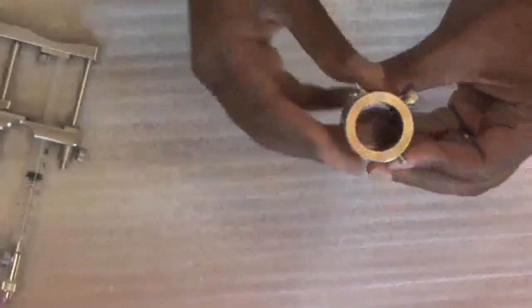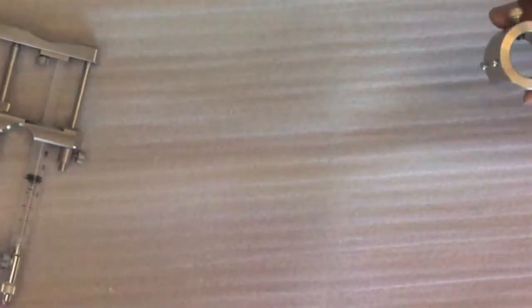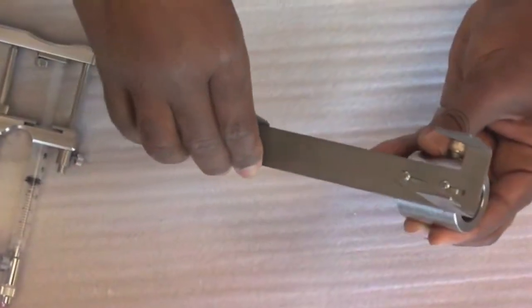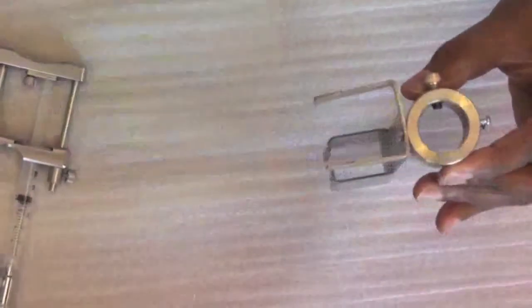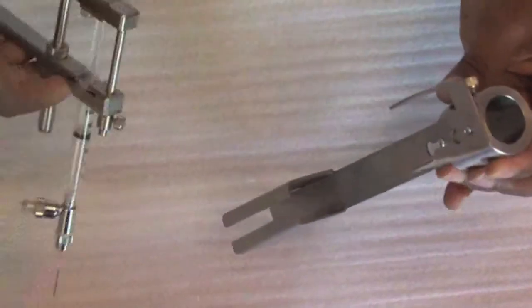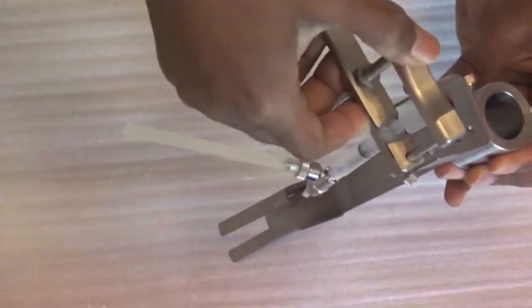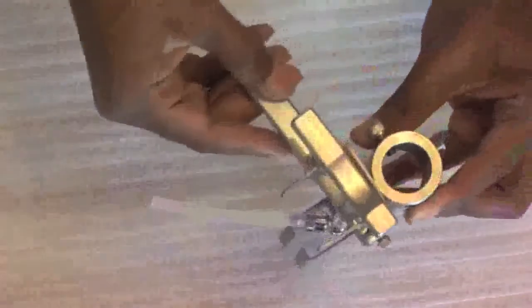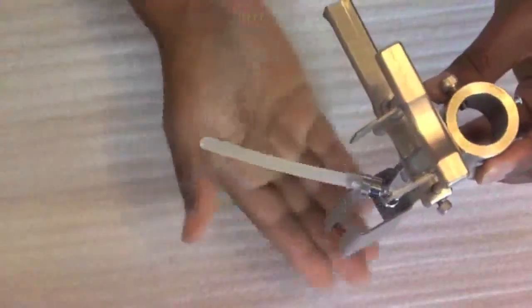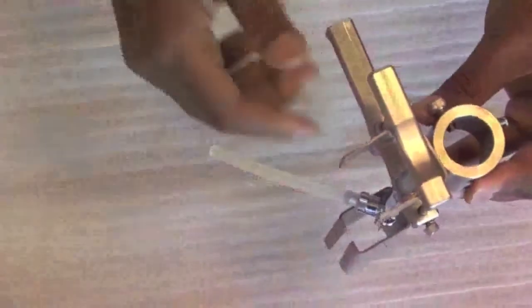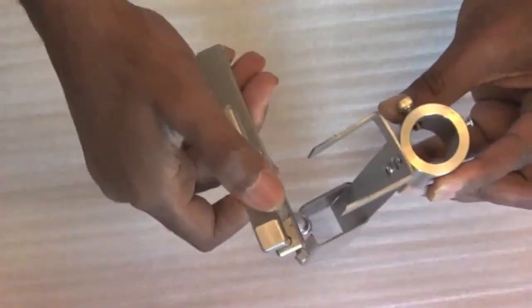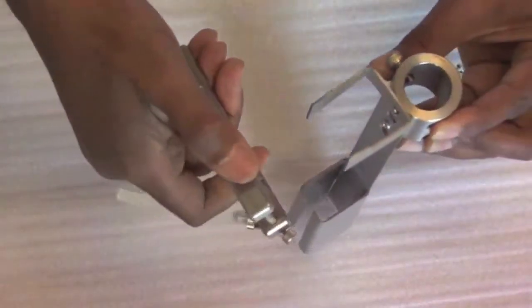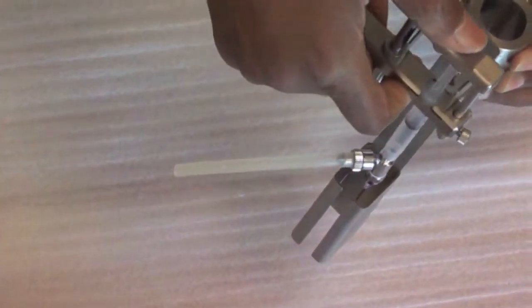We have developed a device that will hold the self-filling injection syringe on an IV pole. This ring attaches to the IV pole, and the stand is used to attach the self-filling injection device. It provides protection from the sharp needle so that accidental needle injury is significantly minimized either from the front or from below the device.